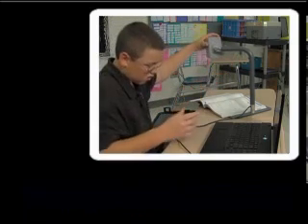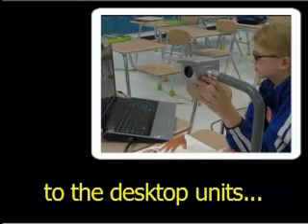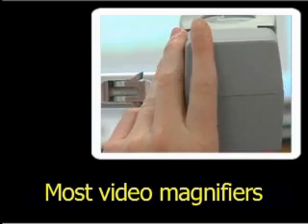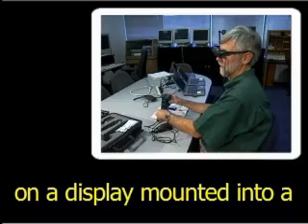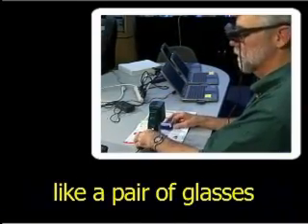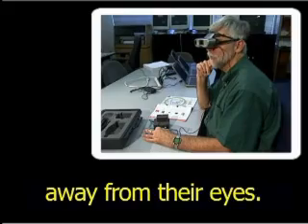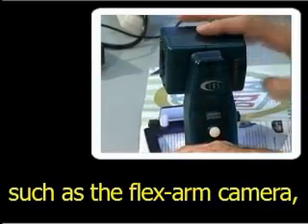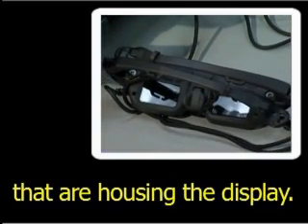Pricing for FlexArm video magnifiers is comparable to desktop units, putting them in the $2,000 to $3,000 range without monitor. Most video magnifiers display their enlarged images on a monitor or TV, but another option is to view the image on a display mounted into a unit worn on the user's head, like a pair of glasses or goggles. This type of system, with a head-mounted display, allows users to view images a few inches away from their eyes. Similar to a handheld slide viewer, the head-mounted unit straps around the user's head and can connect to different types of cameras, such as a FlexArm camera, a handheld camera scanning reading material, or a camera mounted into the actual goggles housing the display.